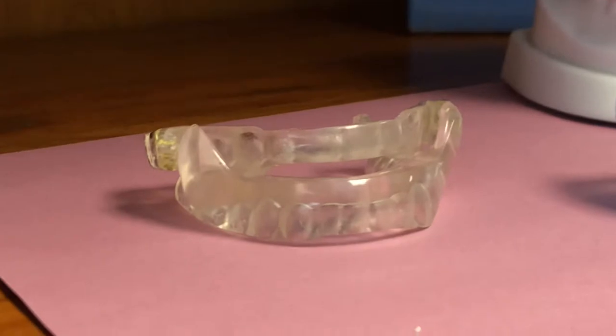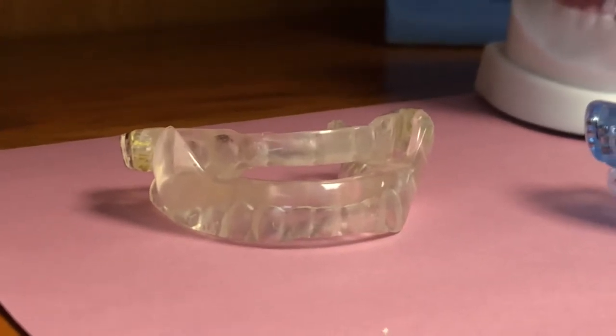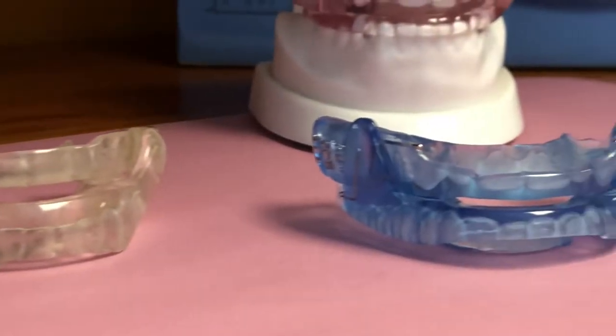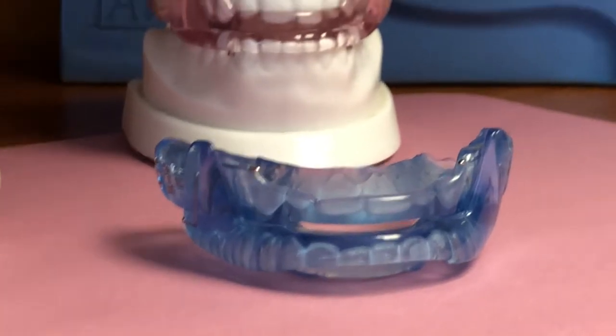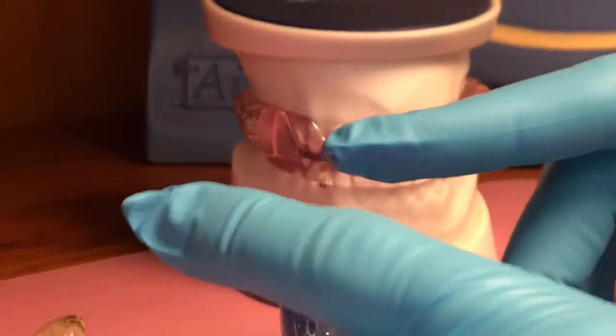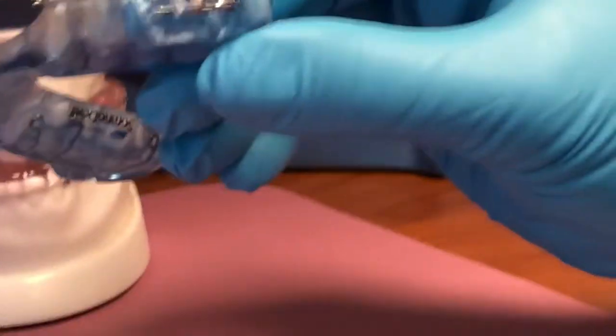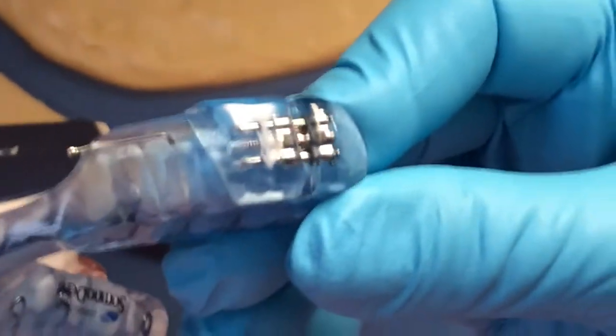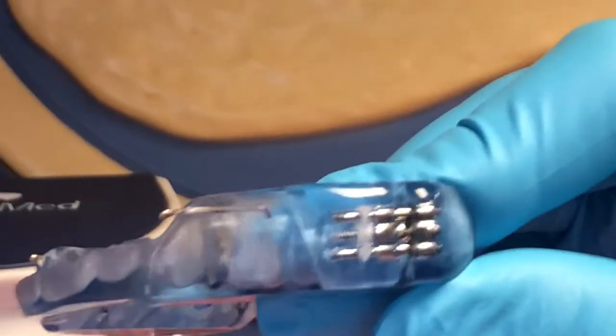They come in a variety of colors, depending on the laboratory that makes them and some of the details of each specific device. But they do share something in common. They will all have this type of mechanism for the advancement tool.